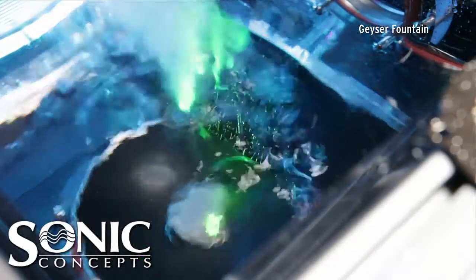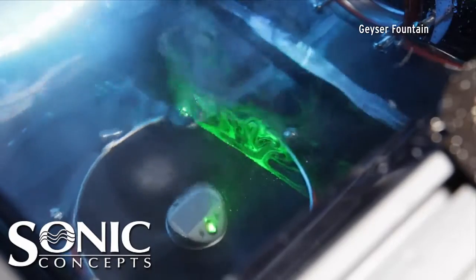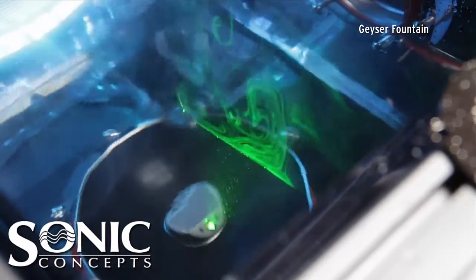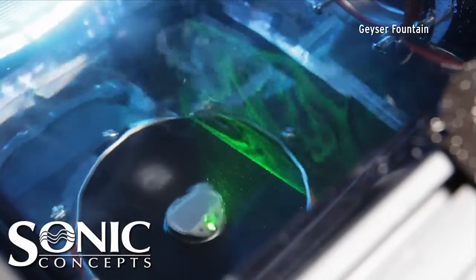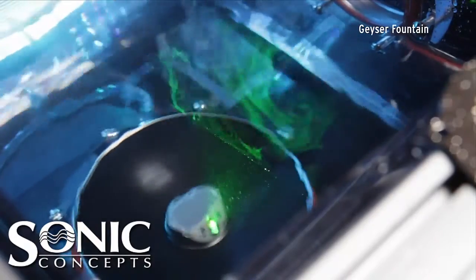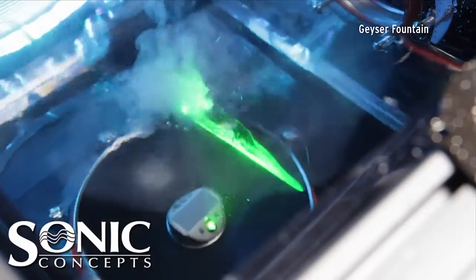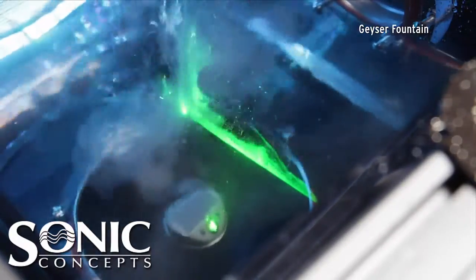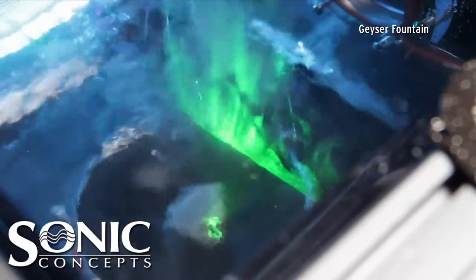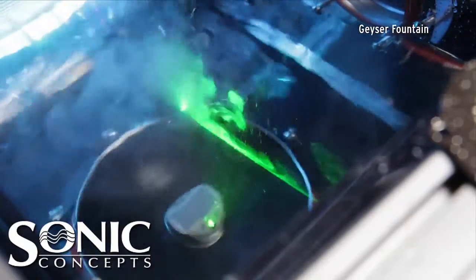Using the same acoustic power, the water surface is lowered to one centimeter above the focal plane. The view from above the water surface shows the laser's illuminating plane. When the focus is positioned outside the allowable range, the focused sound pressure atomizes the water making fog that follows a turbulent airflow above the water. When steering outside the intended range, high-intensity side lobe activity occurs at the water surface. When steering inside the intended focal range, the pulsed HIFU reduces nebulization and can be tracked by plumes of water displacement.